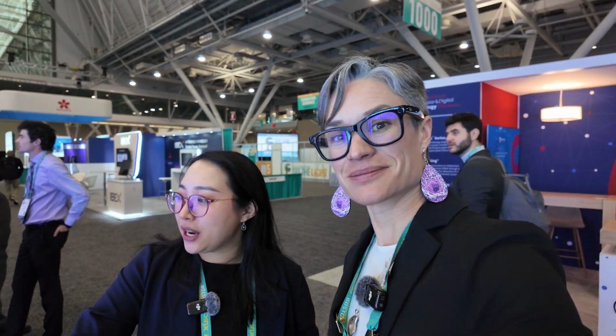And with reporting today, we're able to do dictation because we know a lot of pathologists enjoy dictating their reports. I enjoy talking rather than writing. Same here, I send a lot of voice messages. So we can definitely do dictation in this report.